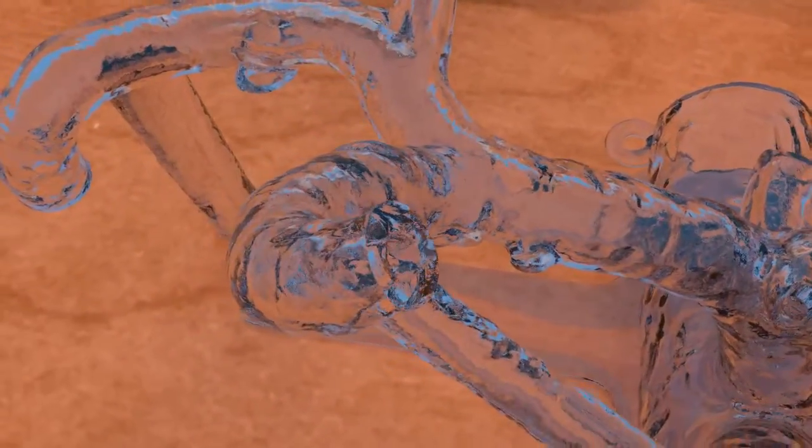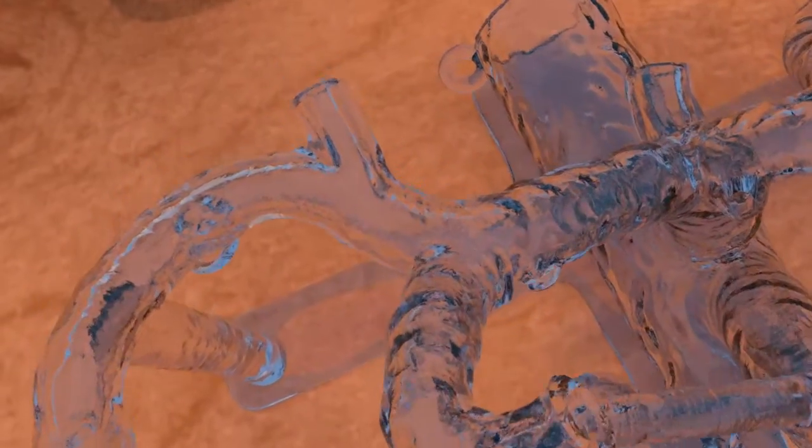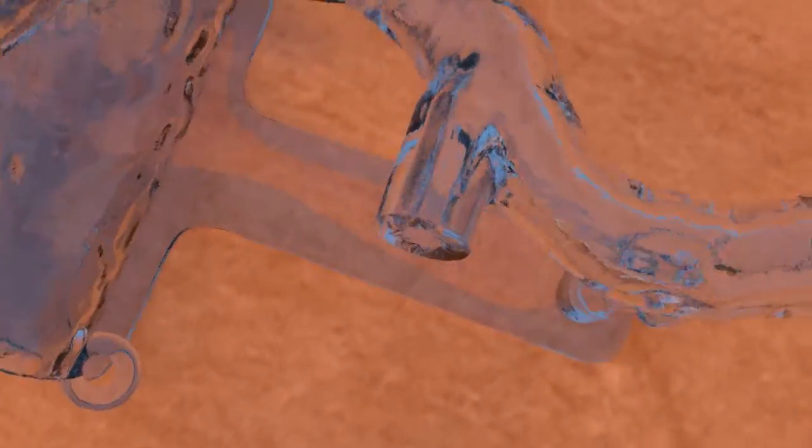Detailed hepatic arteries are present, including the common hepatic artery, the gastroduodenal artery, the left hepatic artery, middle hepatic artery, and right hepatic artery.